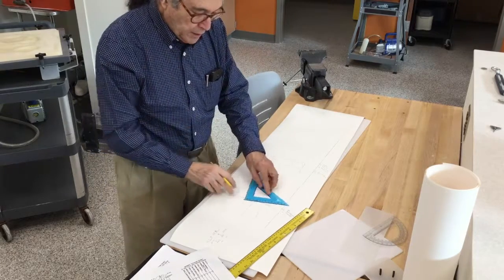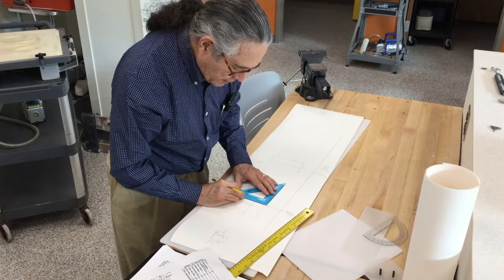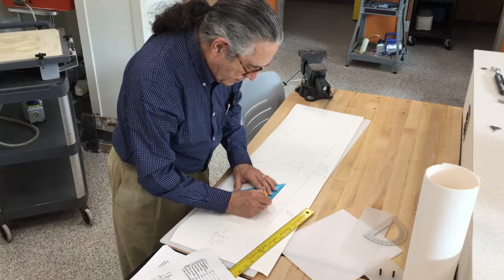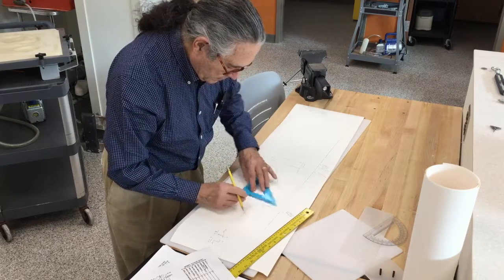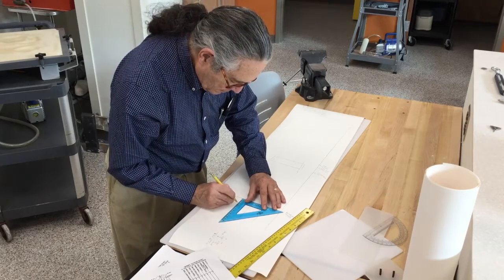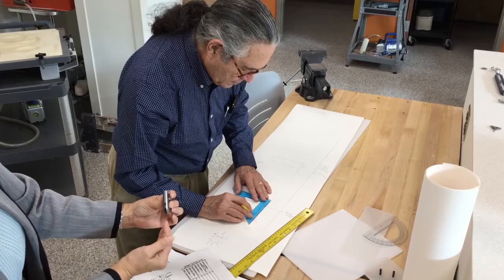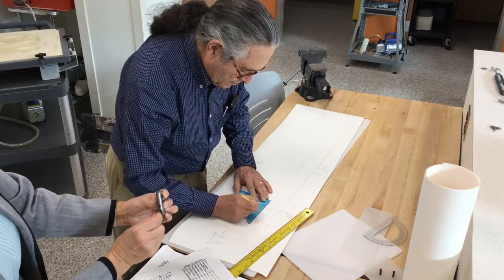At these points, you want to extend the lines parallel to the midsagittal line, 25 millimeters in either direction. Since there's a 9-millimeter gap here, 25 becomes 19. A clevis joint image was brought in to illustrate the 3-millimeter width that is being left for joint clearance.